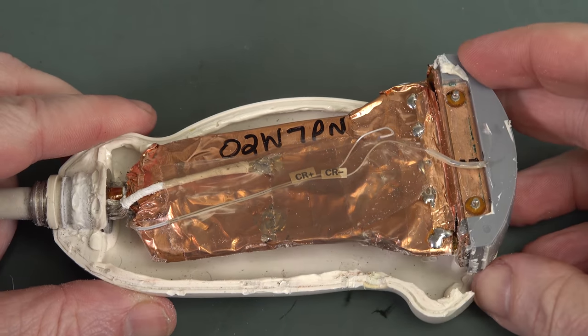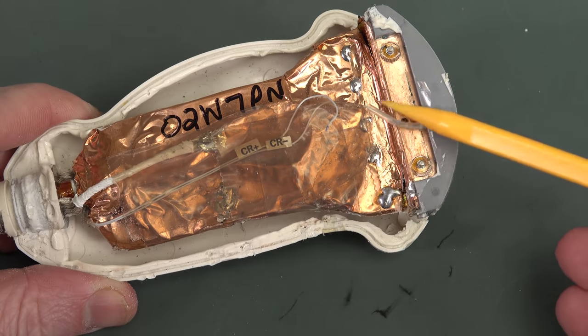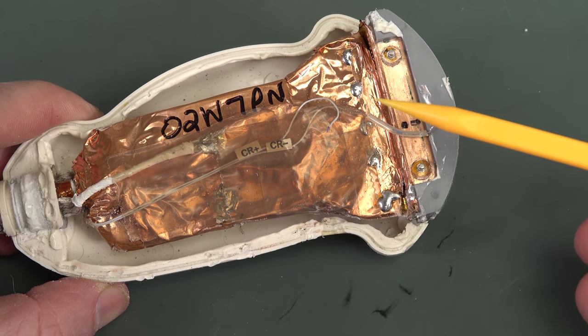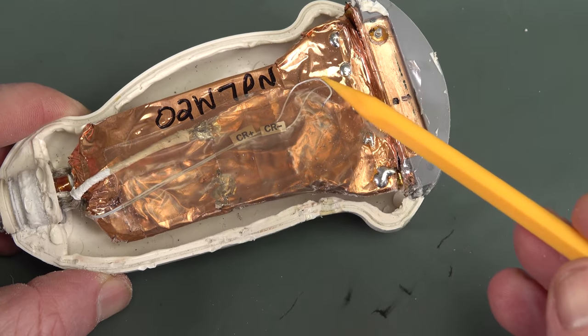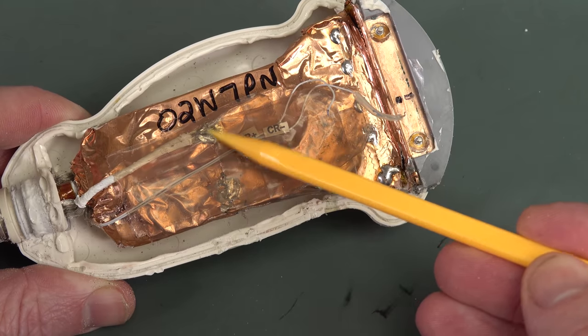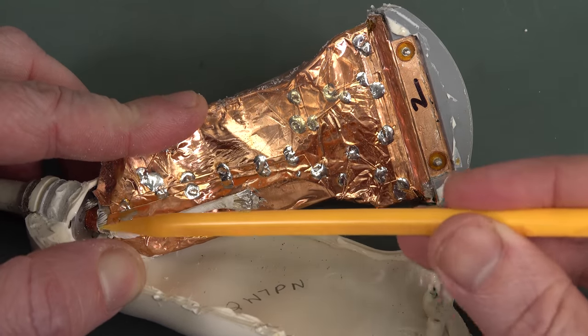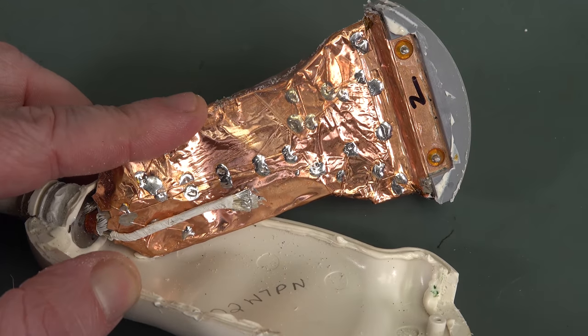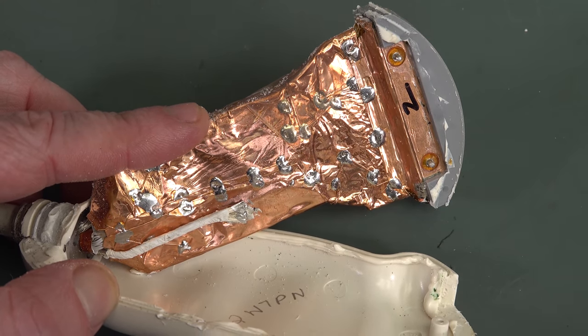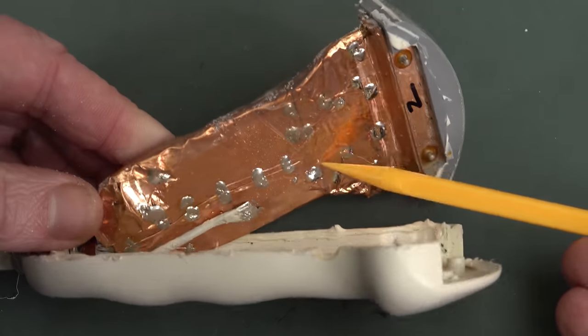So there you have it. That's inside the head. As we saw in the previous teardown video of the ultrasound machine, it does temperature sensing in the head. The software can detect that it's getting too hot, putting too much power into it - it's a safety mechanism. So that was a thermocouple, now a broken thermocouple I guess. You can see that the braid is connected to the top side there and also down to the bottom side. Look at that copper shielding tape - they're really serious there.